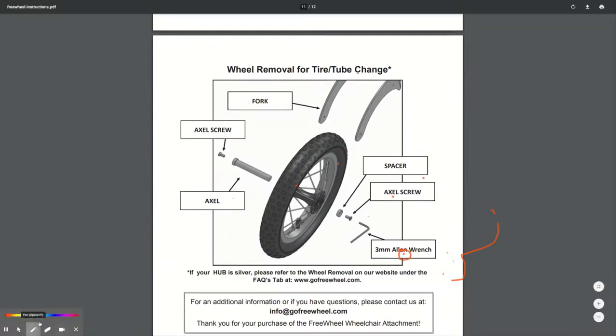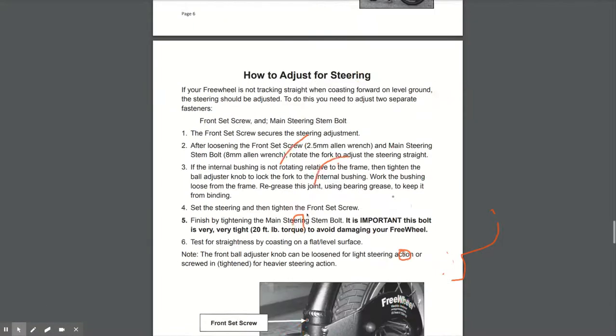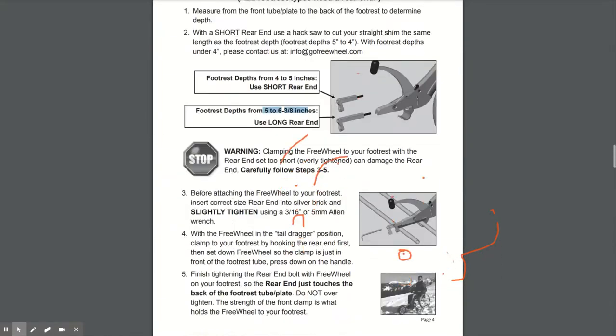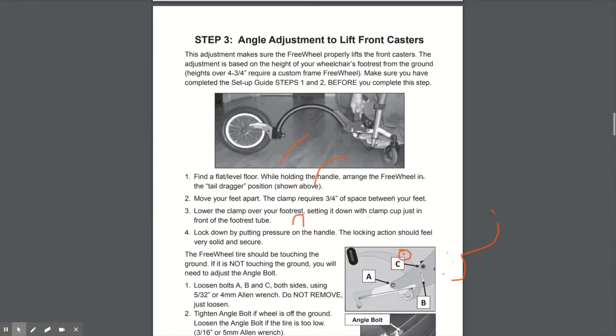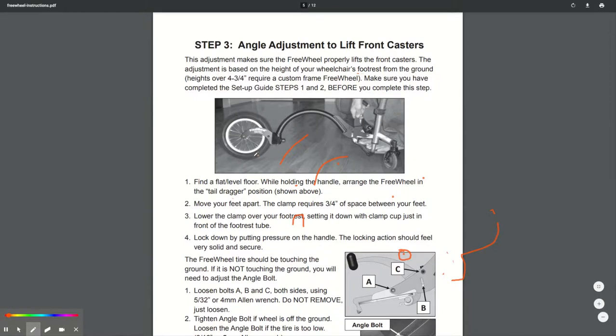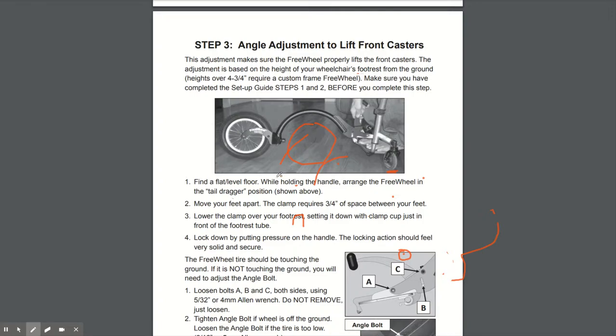You do also need to make sure that the tire is inflated. The tire may not come inflated. So use a normal bike pump and just inflate the tire so that it's fully inflated because that will have an impact on the caster wheels. So if you imagine once your weight is in the wheelchair, if this tire is flat, then when it's in its position here, your caster wheels are not going to be off the floor as much as they could be or should be if the tire is flat. So do ensure that you inflate the tire or you check the tire to make sure that it is inflated.